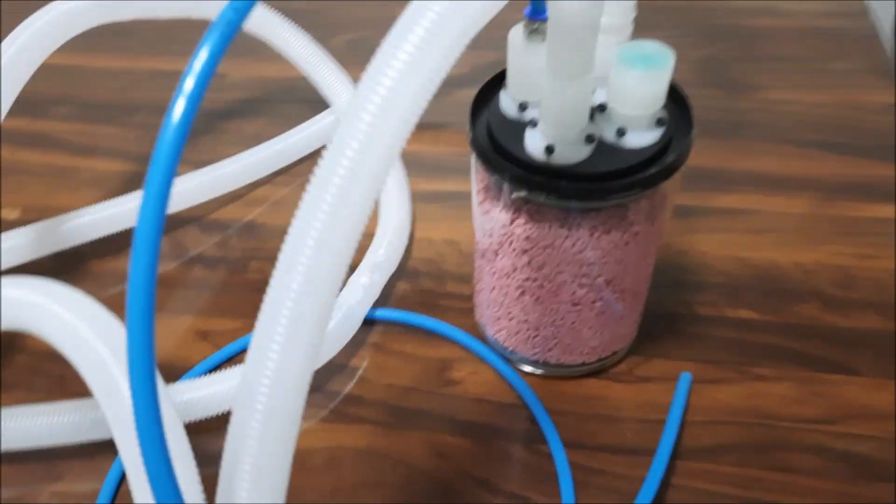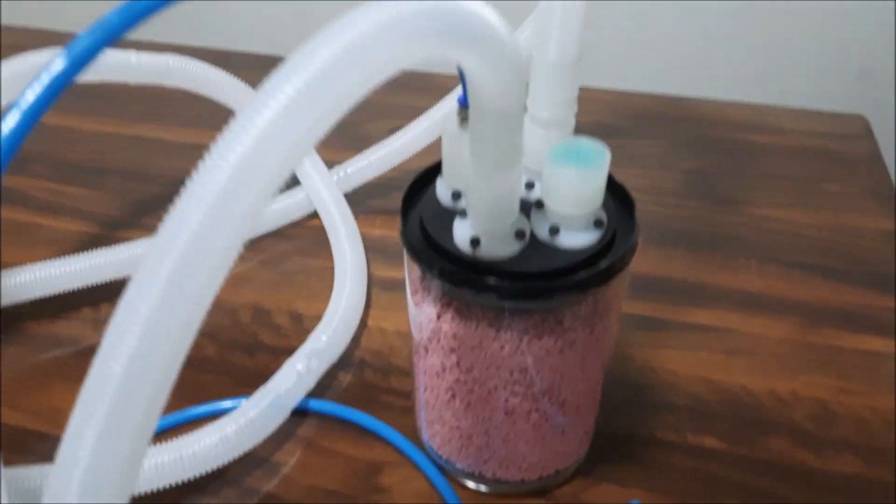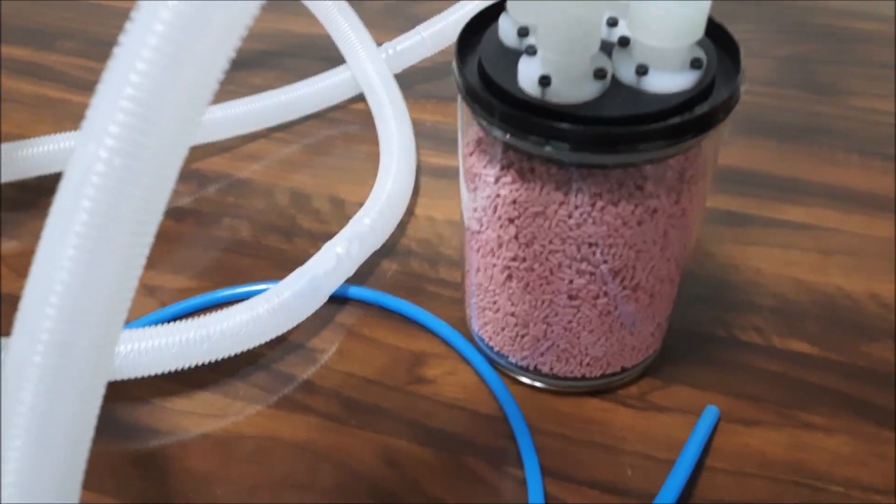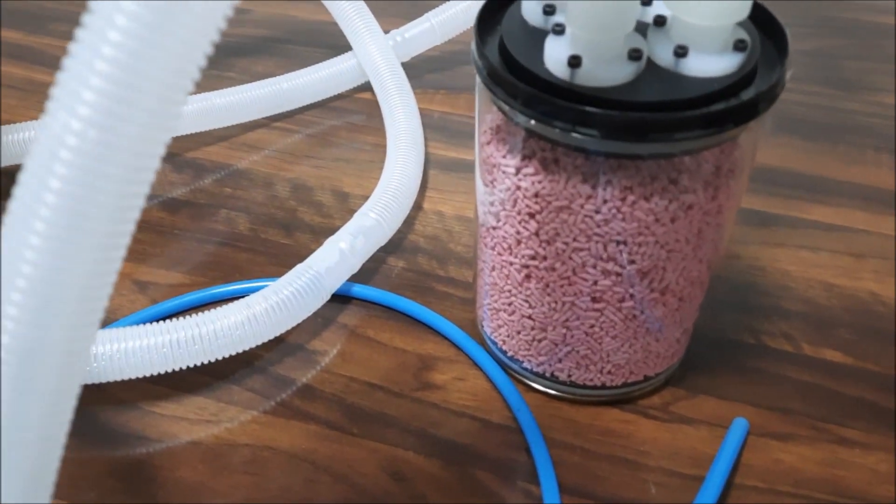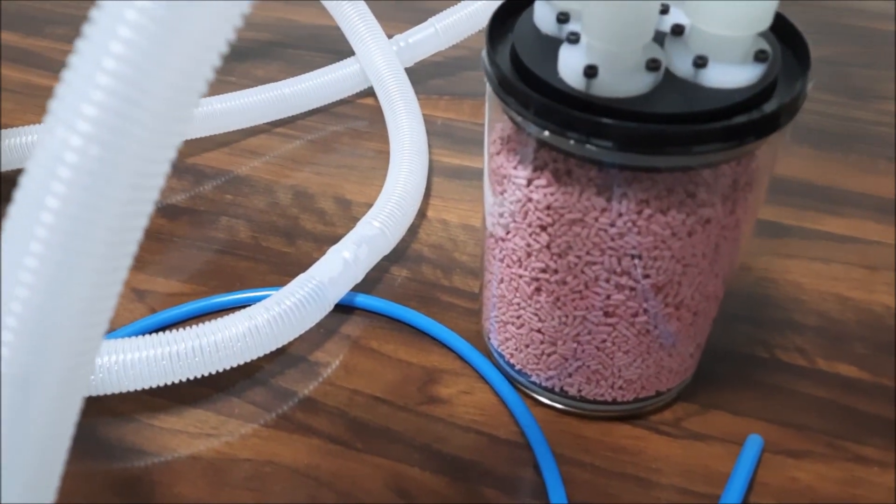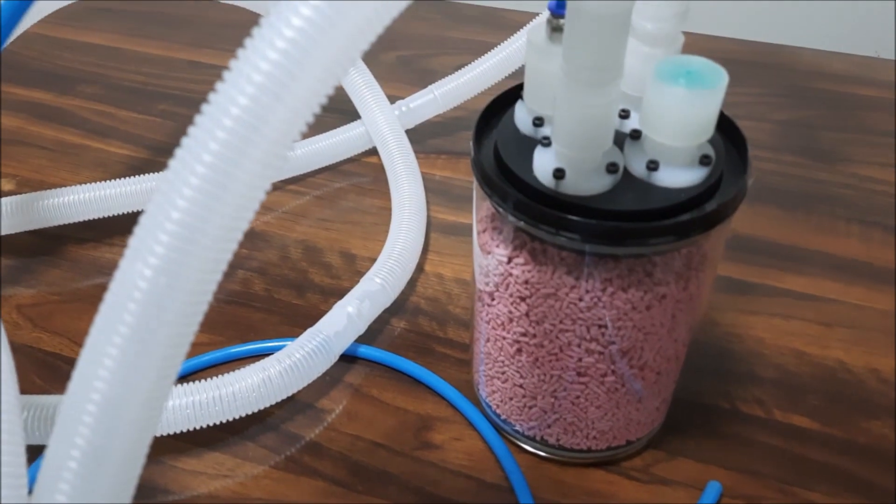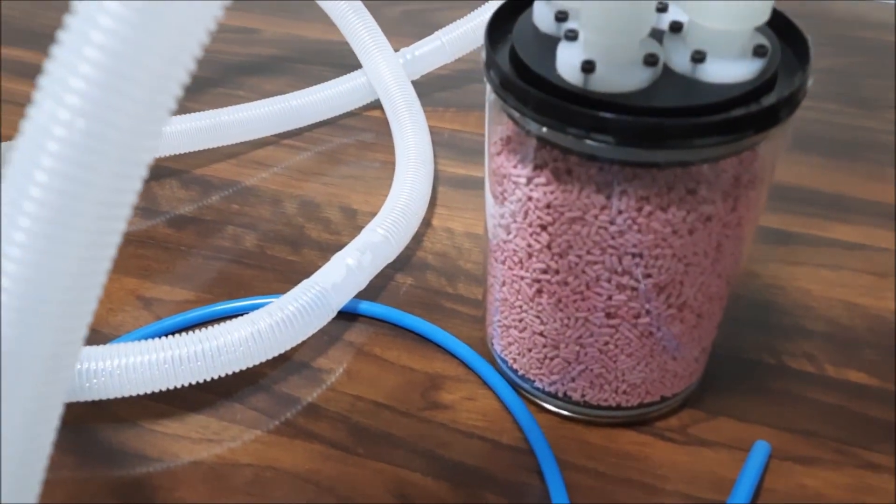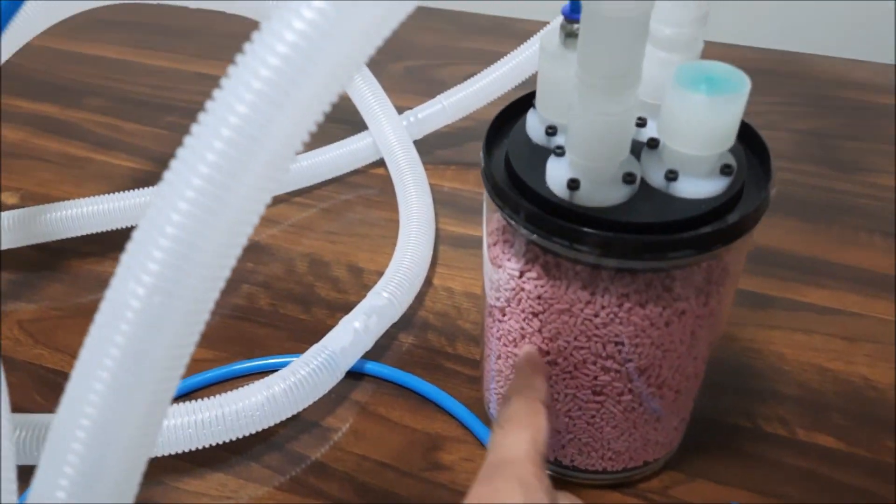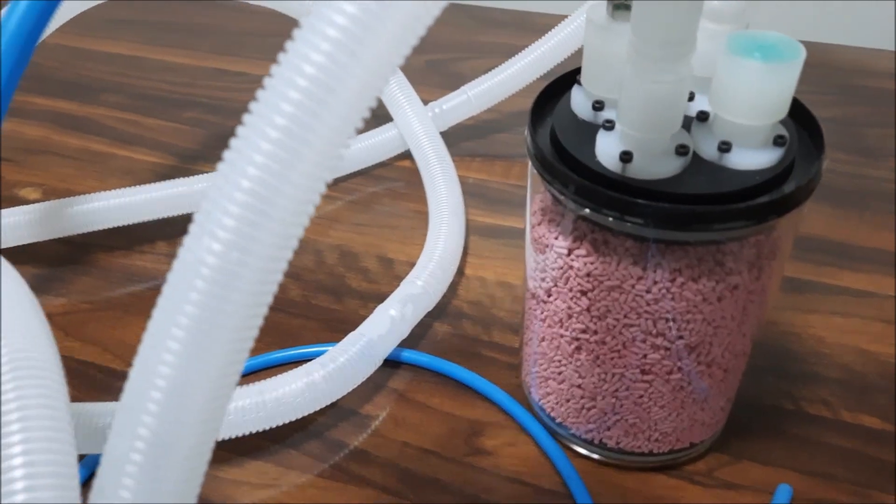The main part of this setup is the carbon dioxide absorbing agent, which turns white when it absorbs carbon dioxide completely and can no longer do that. That is an indicator that the pink color agent which turns white needs to be changed.